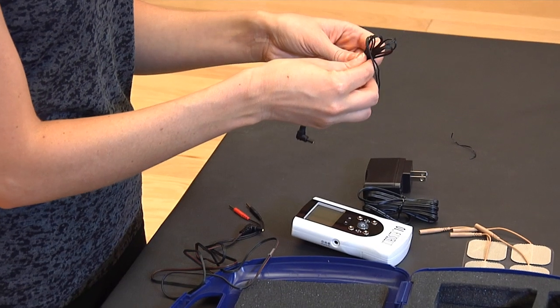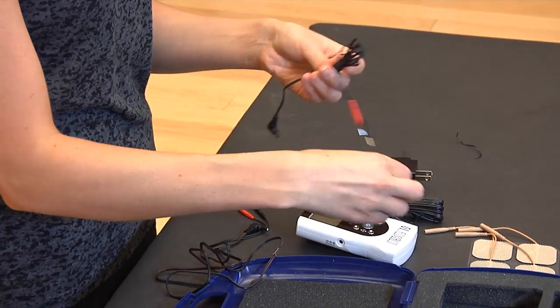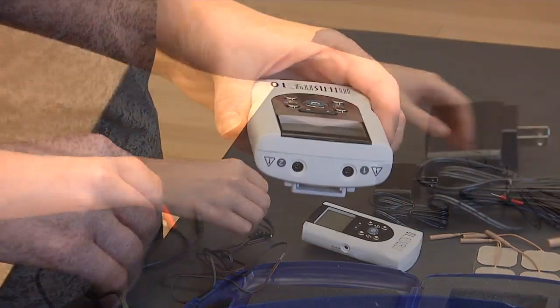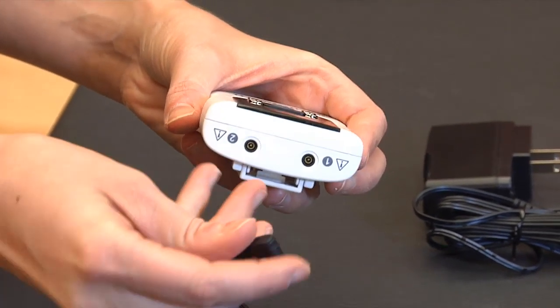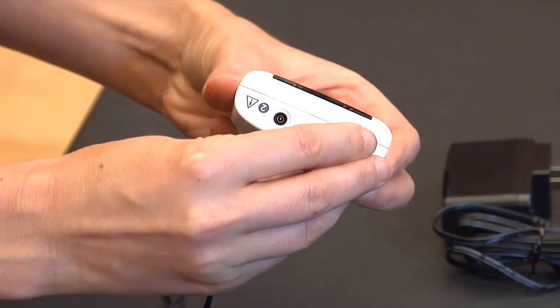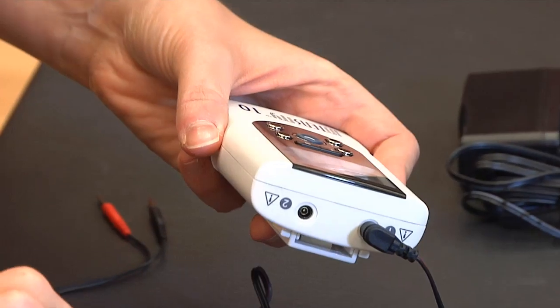Identify the two sets of lead wires and insert the L-shaped end of each wire into the receptacle on top of the device. The receptacles are identified by numbers 1 and 2.